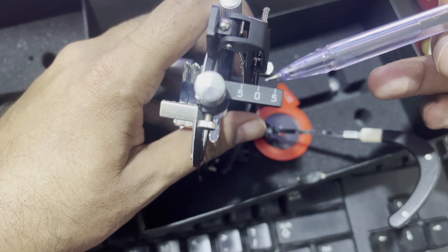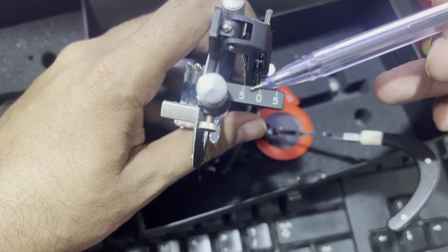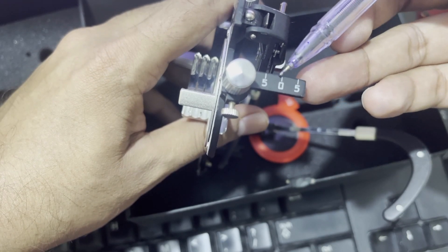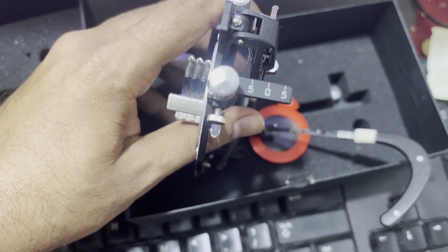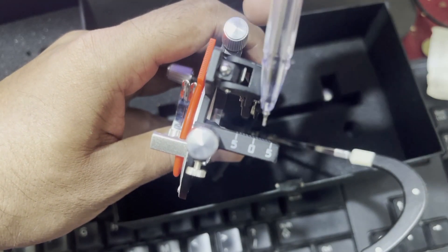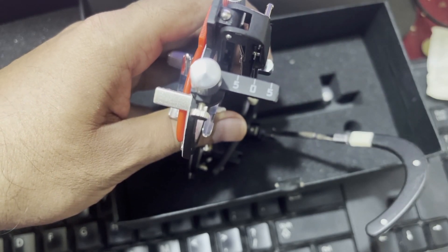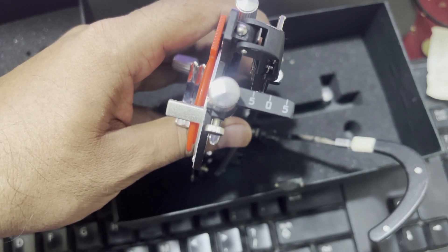You can see this value represents zero, this value represents five millimeters, and this is also five millimeters. These values are for the measurement of the back vertex distance — the distance between the anterior cornea and the posterior of the lens. The back vertex distance is critical when the patient's power is more than minus five or plus five.